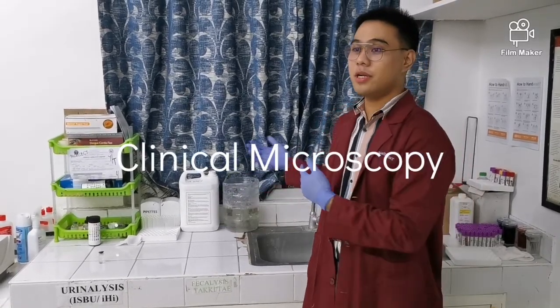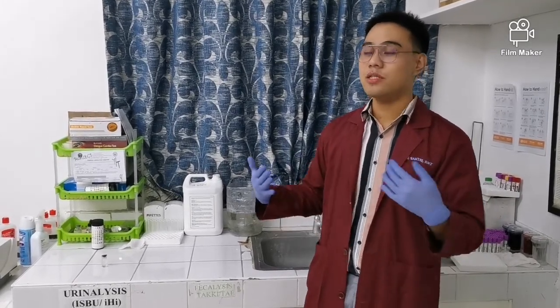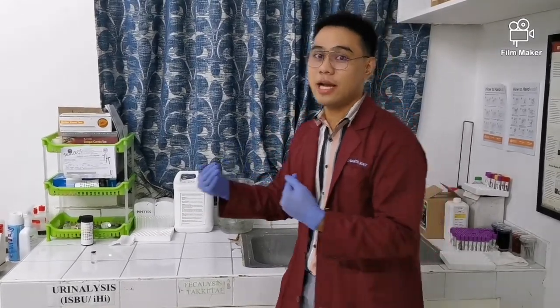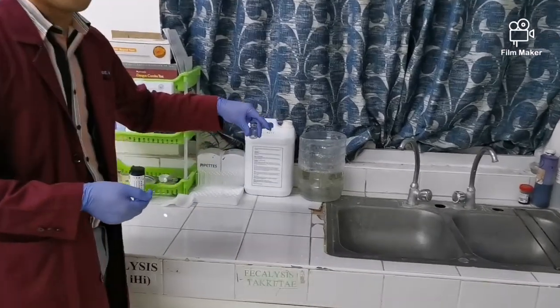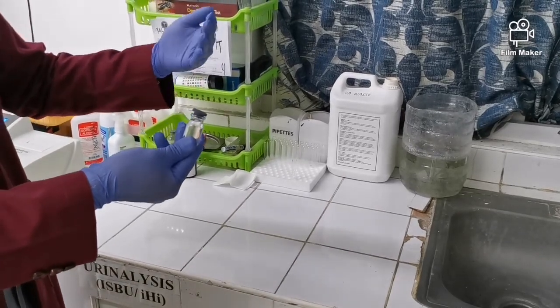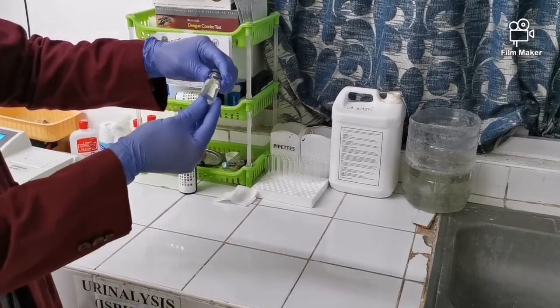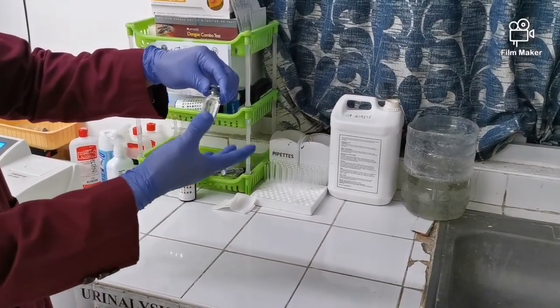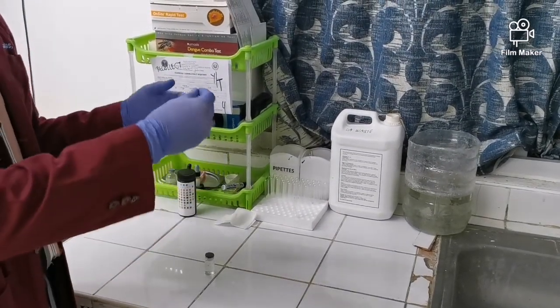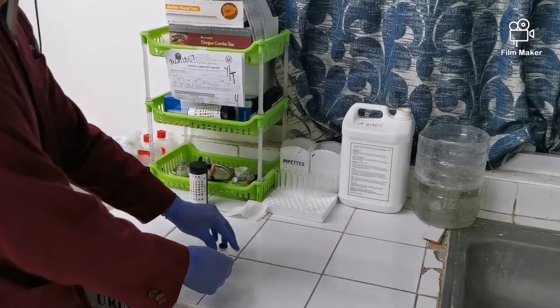So next up is our clinical microscopy section. So ano yung usual na ginagawa natin dito? Ihi at tae. Okay? So ayun, magpe-perform na lang ako ng urinalysis so that you can see kung ano talaga yung ginagawa dito. Okay? So we have here a urine sample. So first phase on our urinalysis is that we must do a macroscopic examination. Okay? So titignan natin kung ano yung color and the characteristic. So based on my observation, straw colored naman siya and it is clear. Okay? So ilalagay ko sa result form will be color, straw, and then the characteristic would be clear.